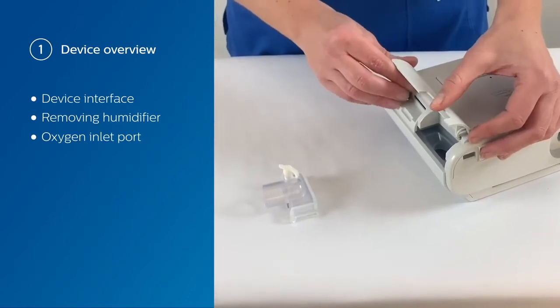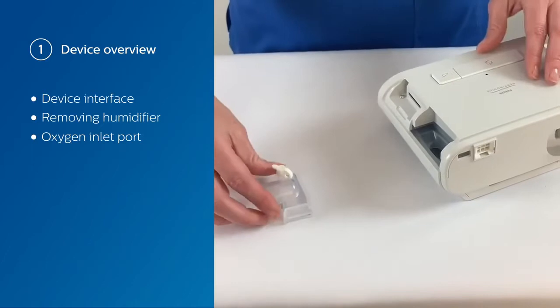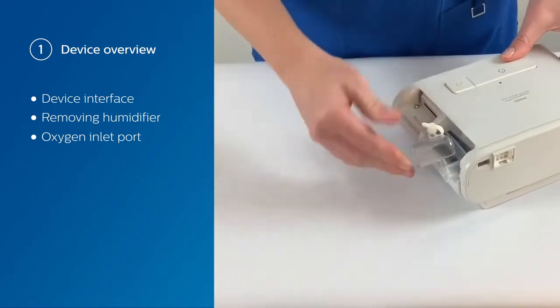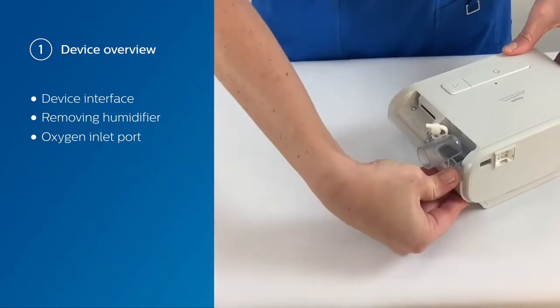It's optional to remove the door — all you have to do is pinch it and slightly lift up. Then you're going to take the new inlet and install that. Just push that in and make sure it's nice and flush on both sides with the device itself.